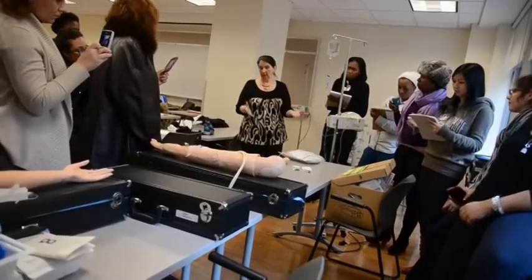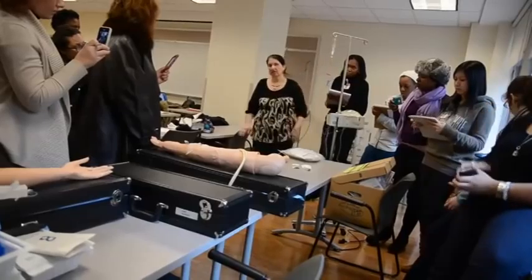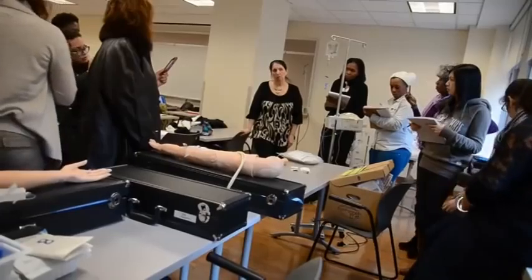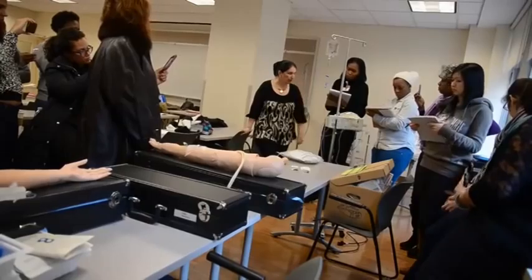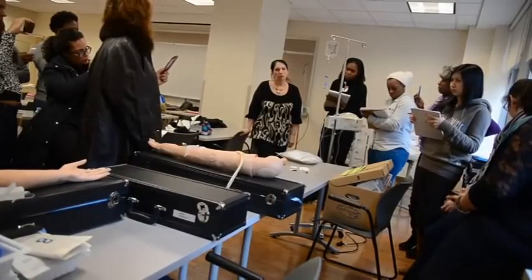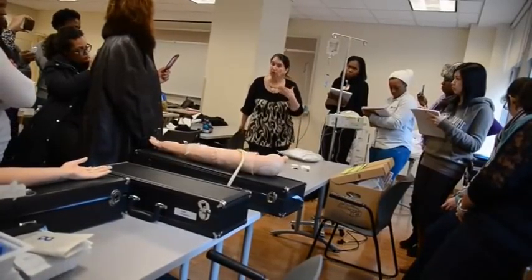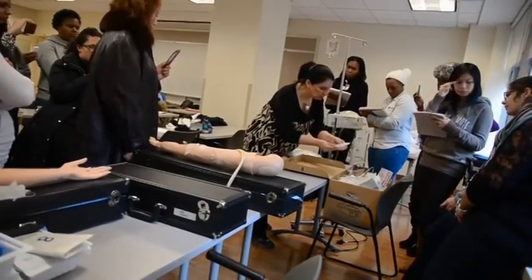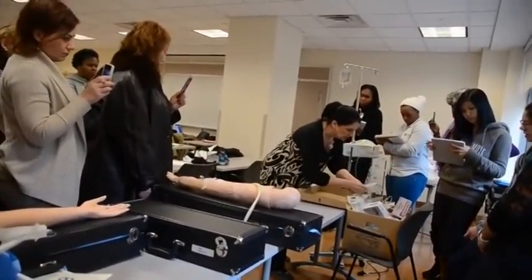So now the last thing we're going to say is, now you're ready to go — how long do I want this to run? This is a 50cc bag. The formula is cc's in the bag times the drip factor divided by the number of minutes you want it to run. The drip factor is 15 — this tubing is 15. When you go to the hospital, you always have to look. Some hospitals are 10.